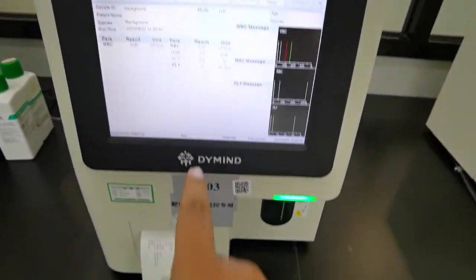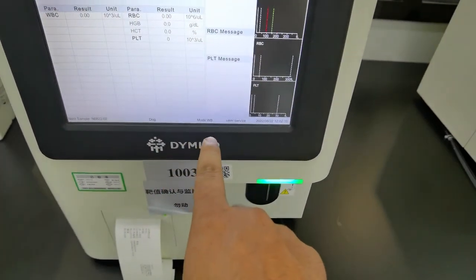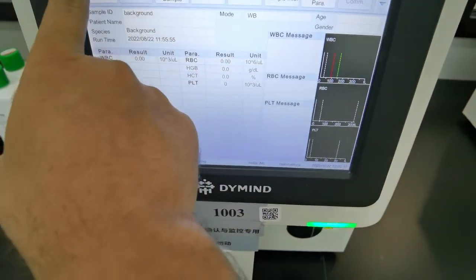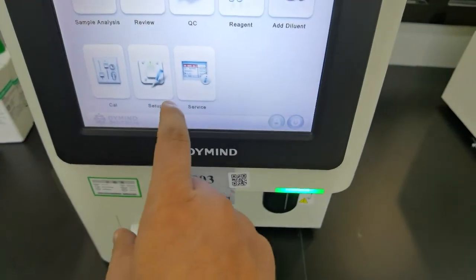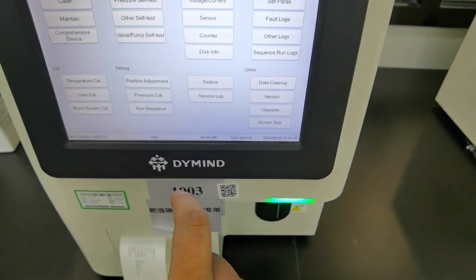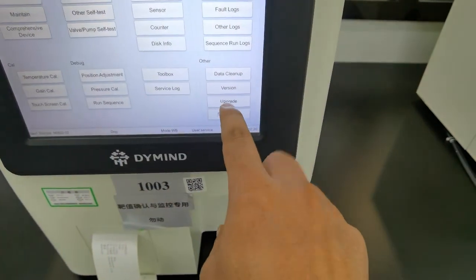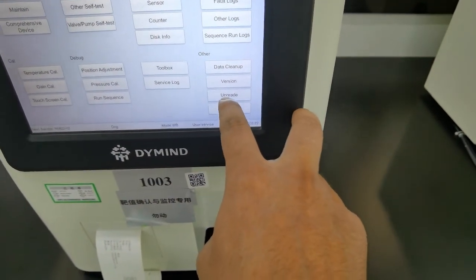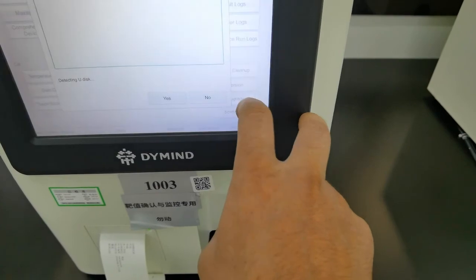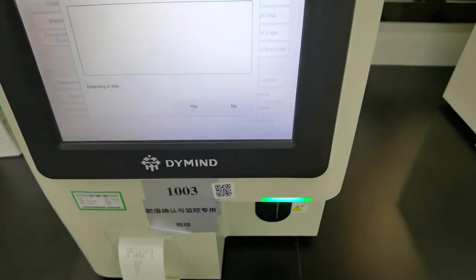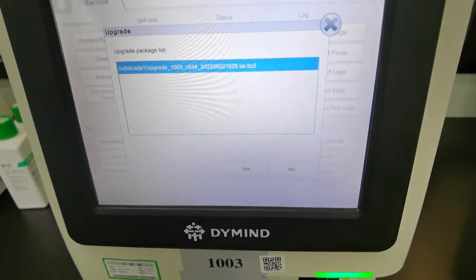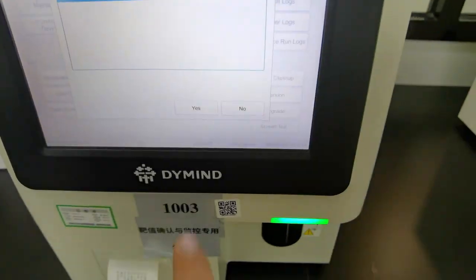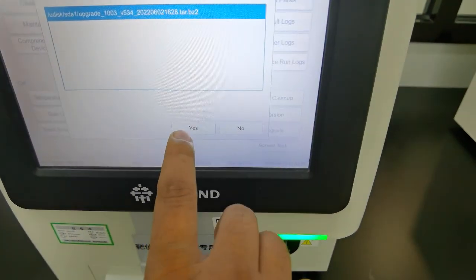Then login as a service account, service account, and then go to service. There you can see the upgrade option, just click on it. Now you can see it automatically detects it.